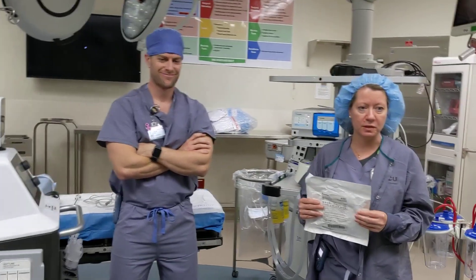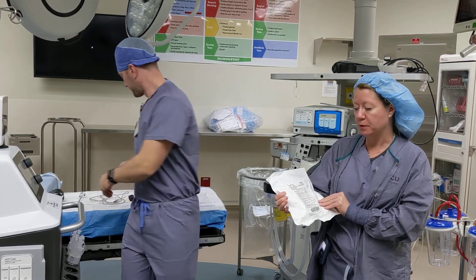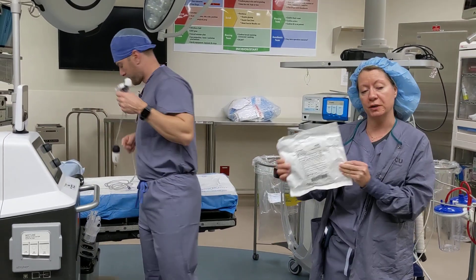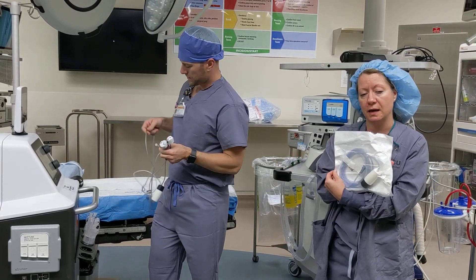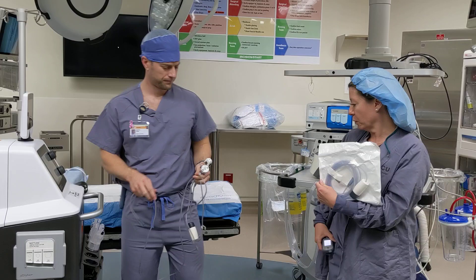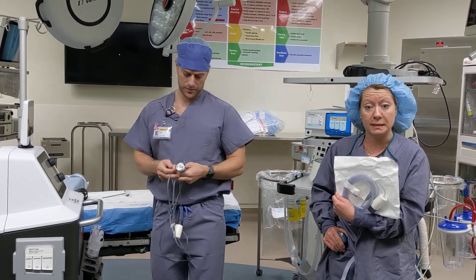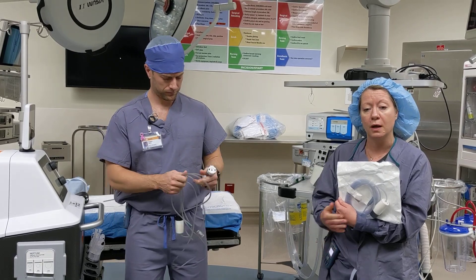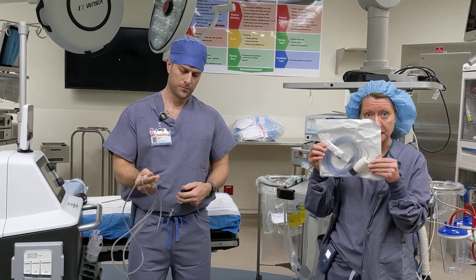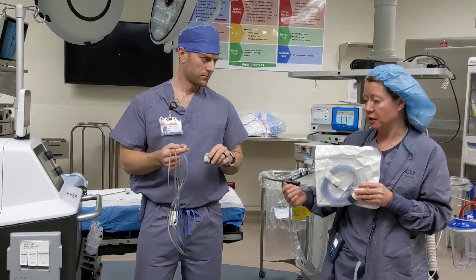Hey, I'm Andrew from Stryker Wirth. We're going to start off this morning by reviewing the PureView, which is the laparoscopic plume filtration device that we're asking everybody to use if possible. What it will do is help desufflate the abdomen after your laparoscopic case is done, and it will take the bovie smoke and the plume and filter it through this device into a smoke evacuation system.